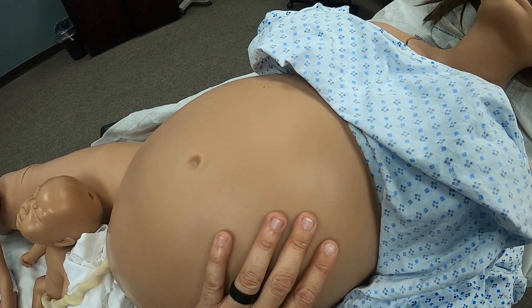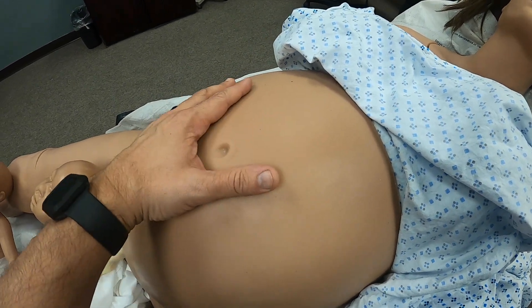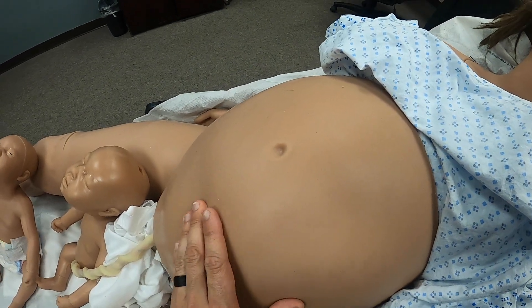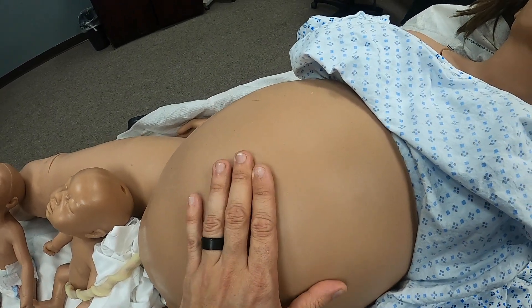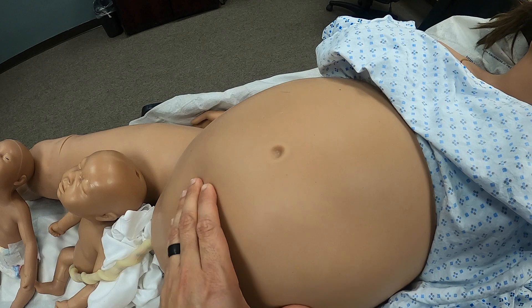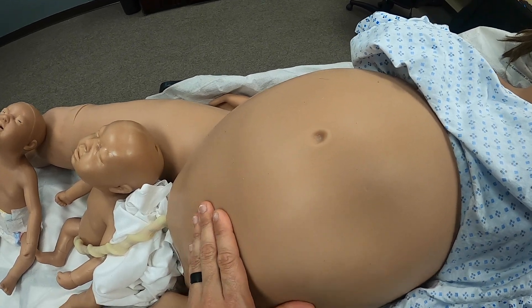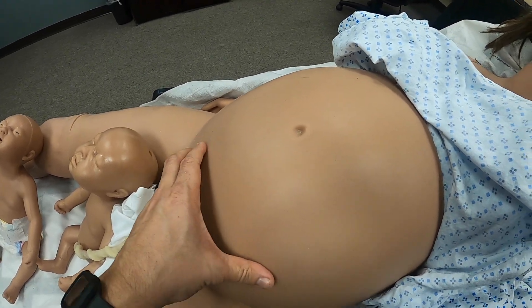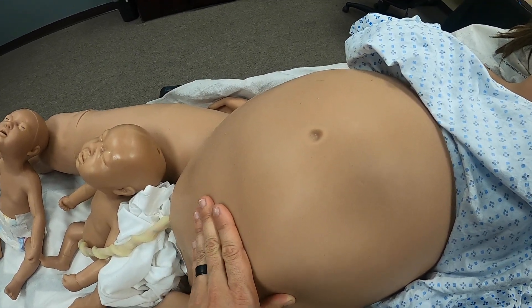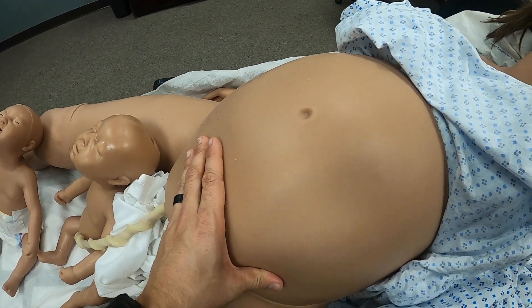With this abdominal case, it has points where students can actually feel the area of the fundus. On this one it's located a little bit lower to represent post-delivery, so we can work on students practicing fundal massages.